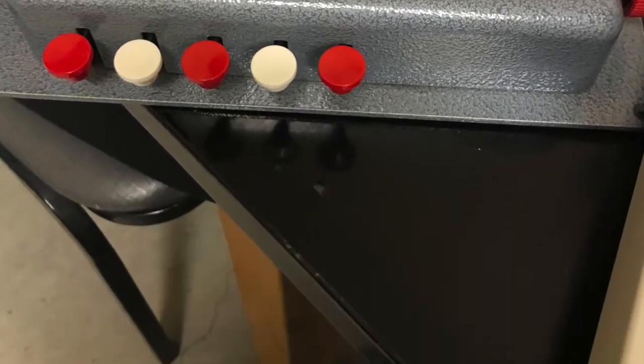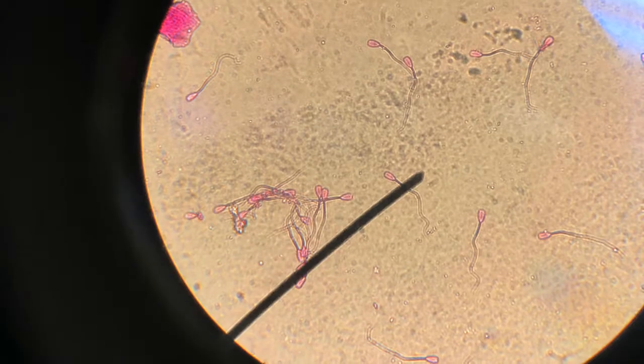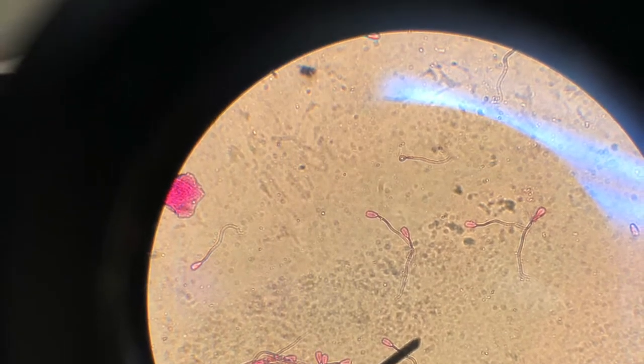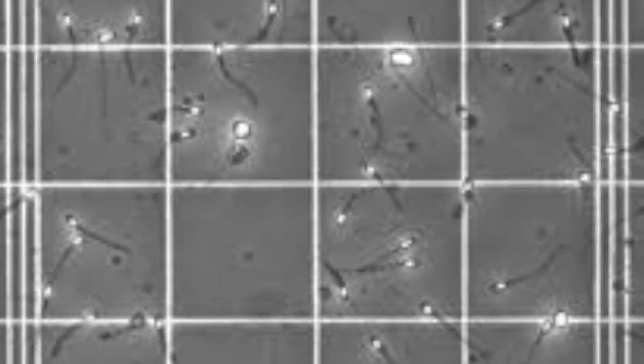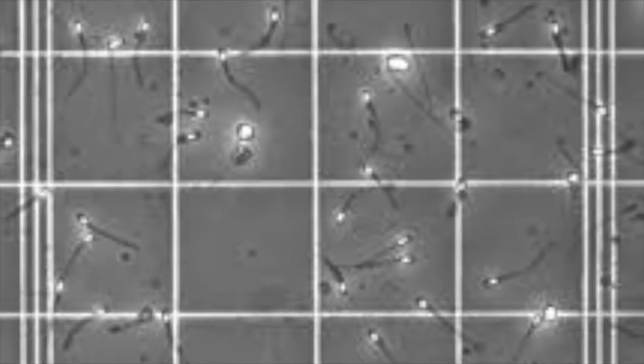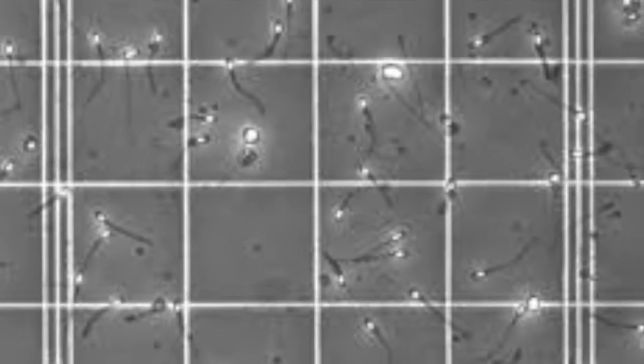In order to determine morphology, we counted 333 sperm as either normal, 1 degree, or 2 degree abnormal. To determine concentration, we counted the number of sperm in 5 squares of the hemocytometer. The concentration of sperm I counted in lab was 770 million. Lastly, to determine live or dead, the sperm that was living was not stained while the dead sperm was stained. We counted the stained sperm versus the not stained sperm to determine live or dead sperm.